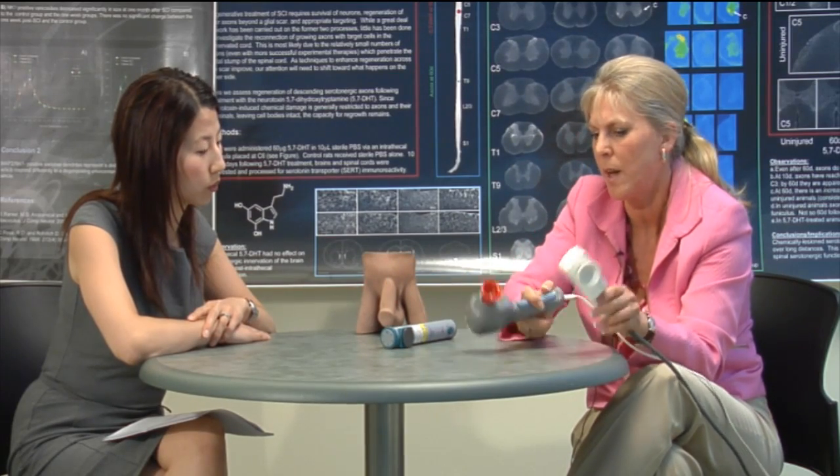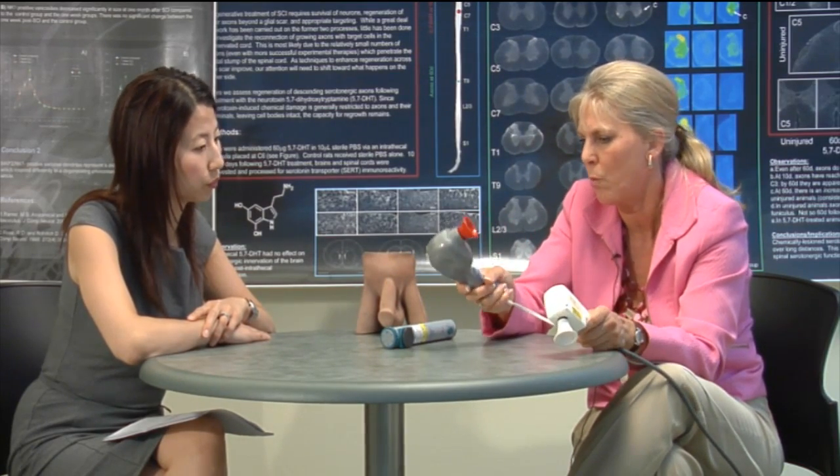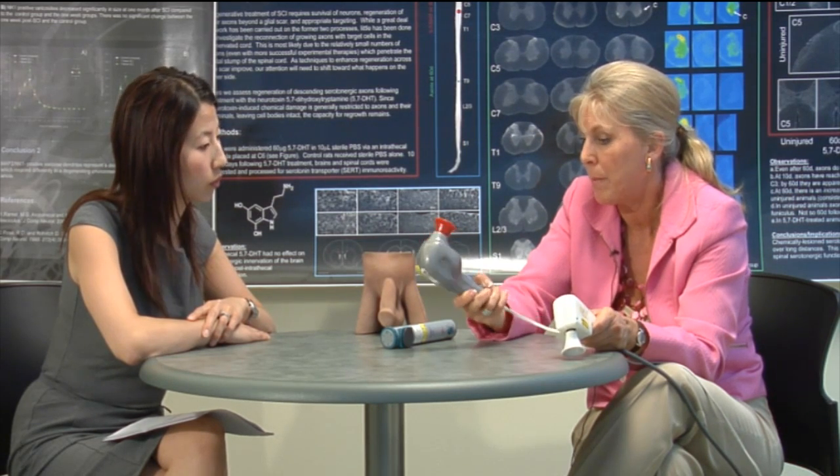Other commercial vibrators are way cheaper — this one is about $40 Canadian — but it's not nearly as strong. One of the things we do at our clinic is hot-wire these, and other patients have done the same: they crack open the casing and jack it up so that it becomes stronger.